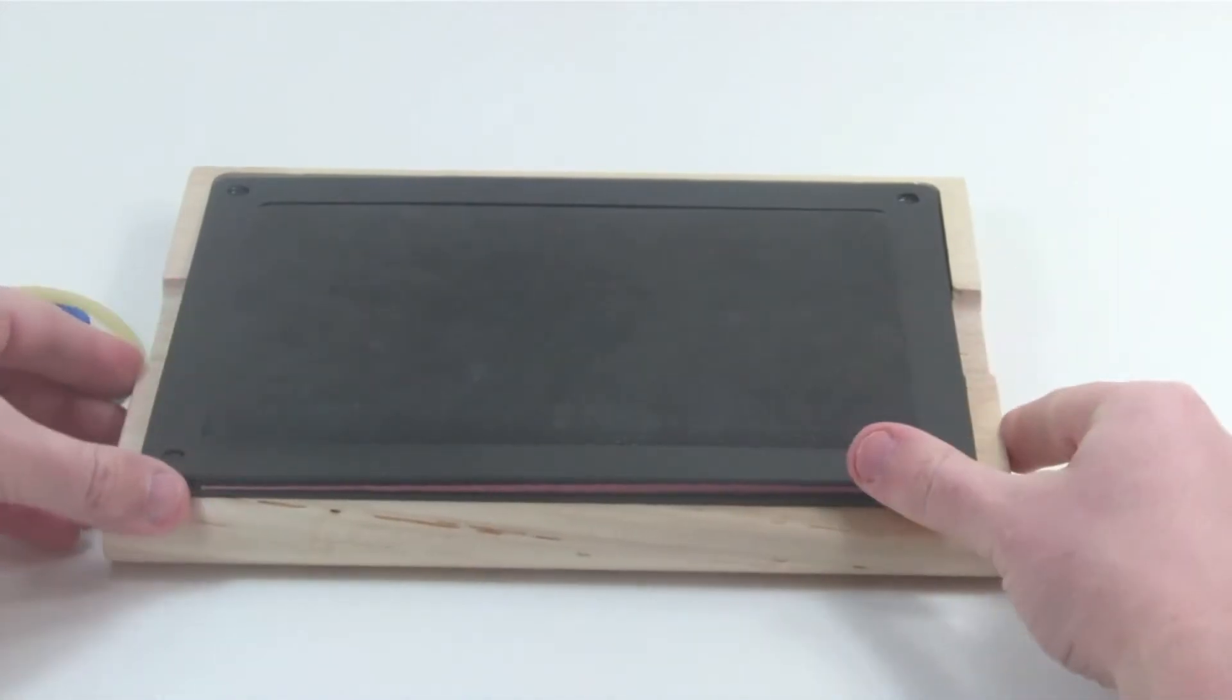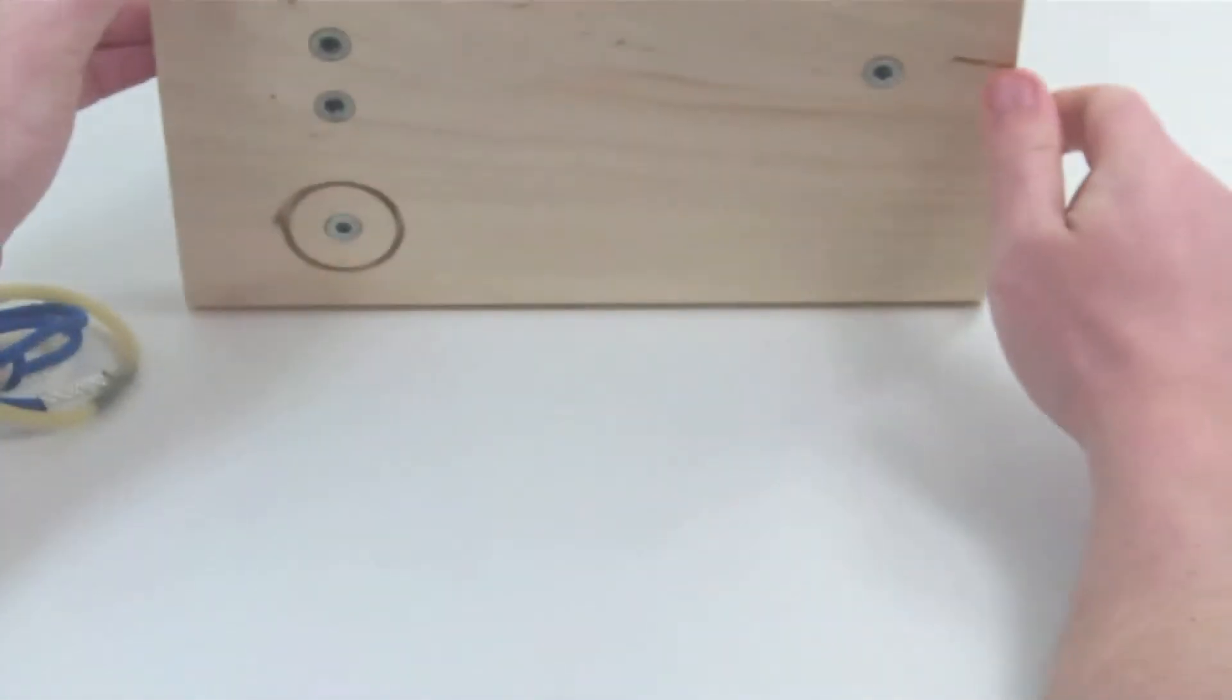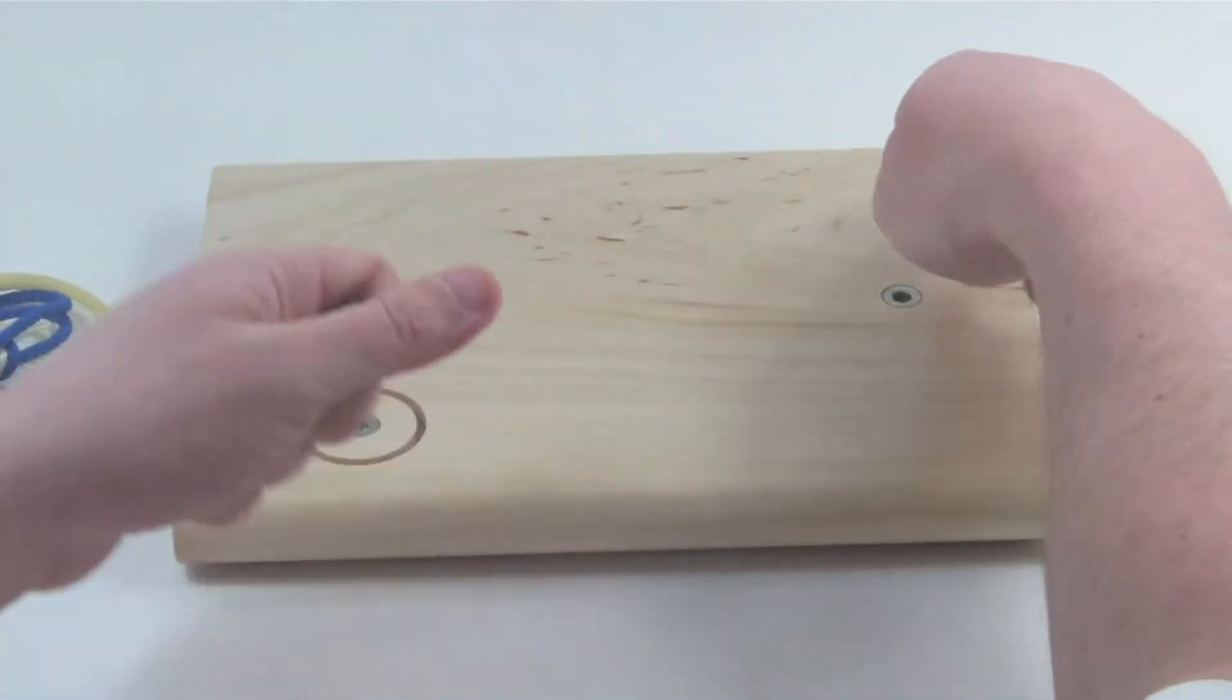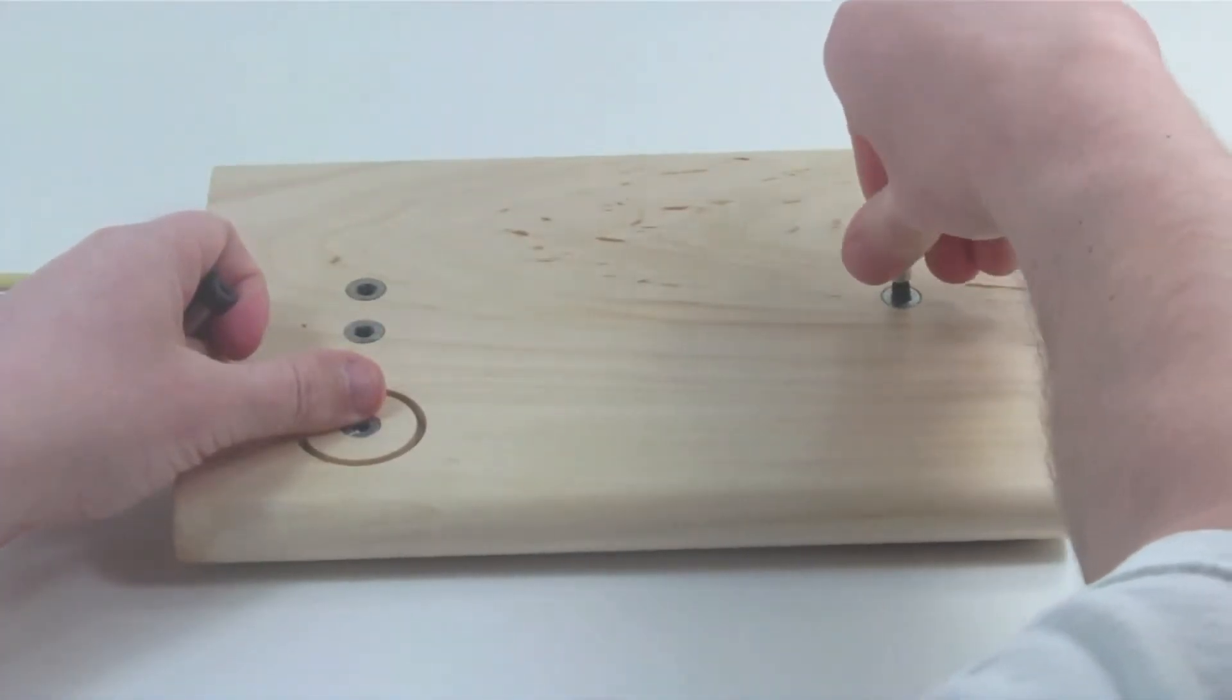Placing the lid on with the suture pad side down creates a non-slip surface. Each of the posts are screwed into a prefabricated slot.